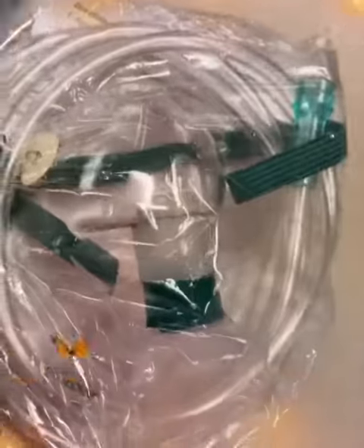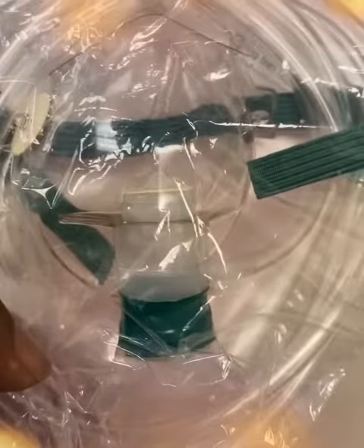You see the bag at the end of it which allows the oxygen to fill up the bag so the patient can breathe in the oxygen from the reservoir. But this flap here, it goes down on exhalation so the patient won't re-breathe any CO2 that they are exhaling.